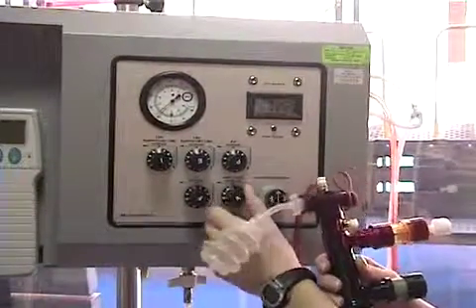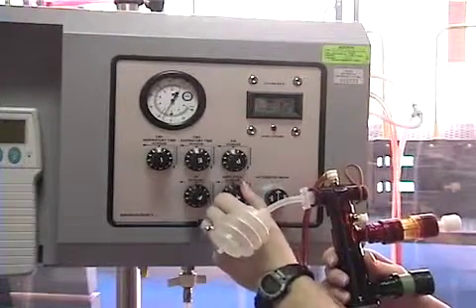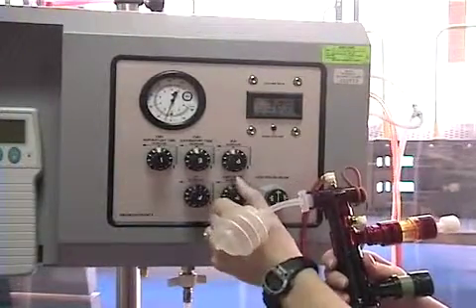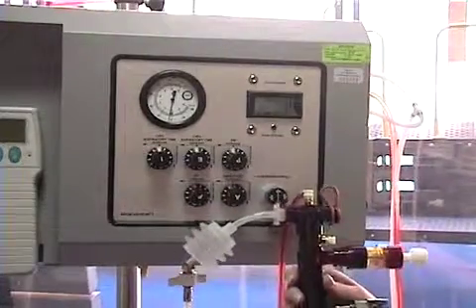Note that dialing the amplitude all the way down on the decreased side will effectively stop high frequency ventilation, even with the frequency knob turned all the way to the increased side.